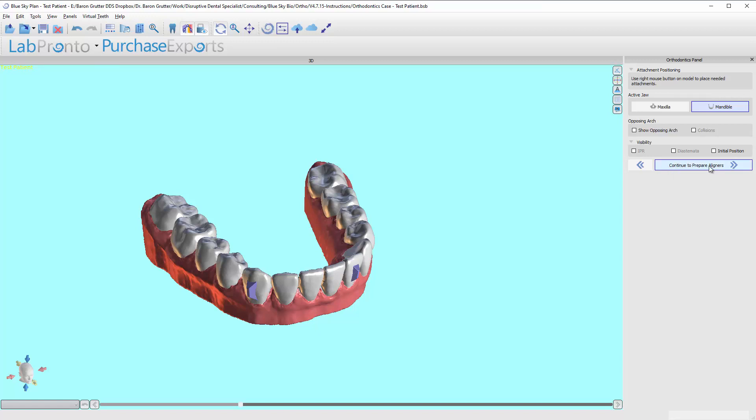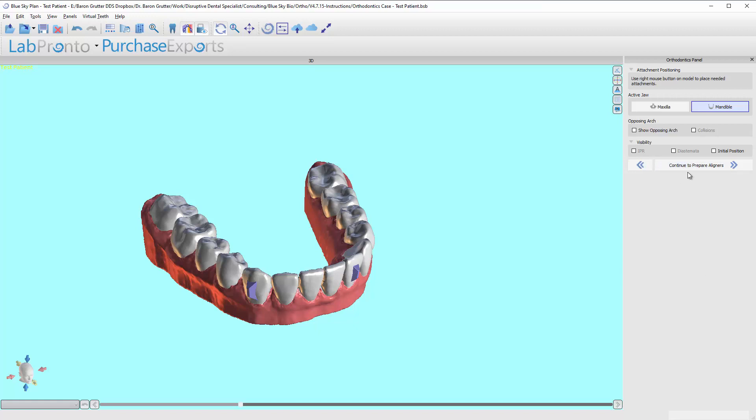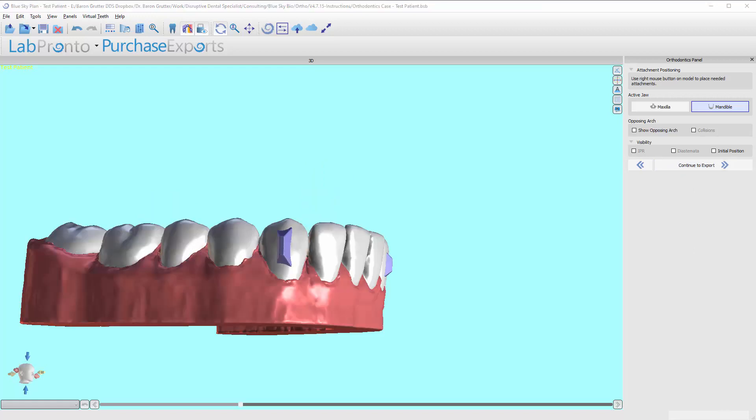Oh, that's because I checked that box to design the aligners inadvertently. So I'm going to go ahead and backtrack on my own and then come back and then we'll just continue on in the next phase. All right, so I went ahead and fixed it. You can see that now it says continue to export instead. Again, we don't need to make the aligners.